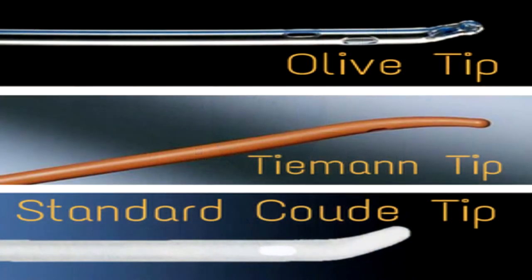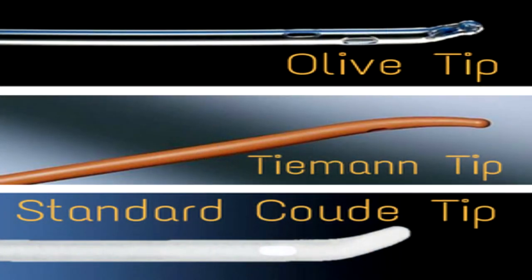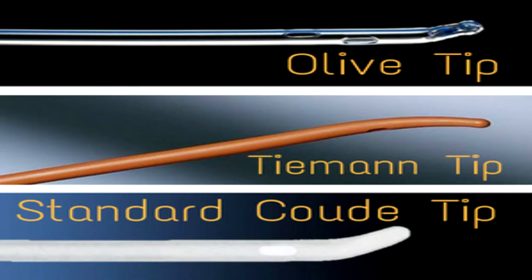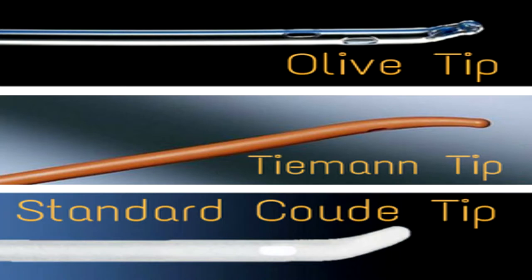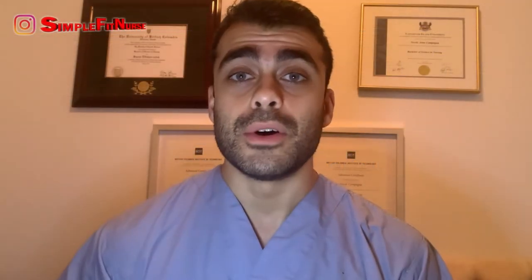Number four: if all else fails and you can't figure out why the Foley catheter is not draining the patient's bladder, try using a coudé tip Foley catheter. The coudé catheter is specifically designed to maneuver around obstructions or blockages in the urethra. Coudé is the French word for bend or elbow, and coudé catheters are slightly bent at the tip, which helps them move past a blockage.